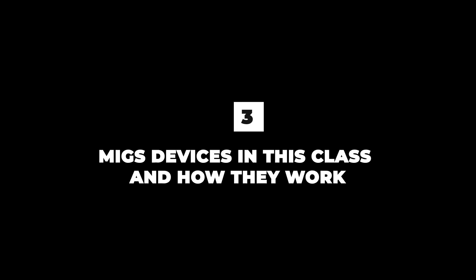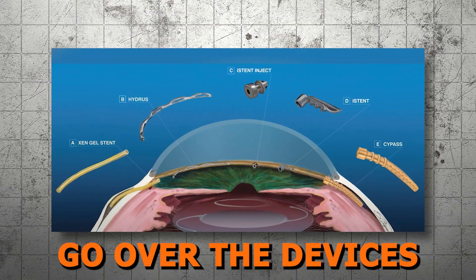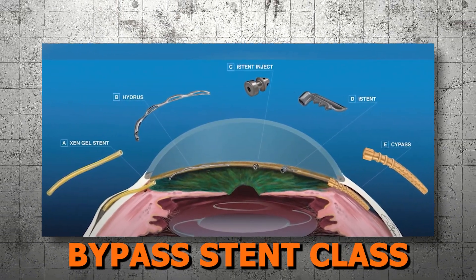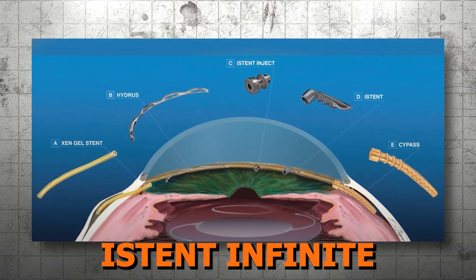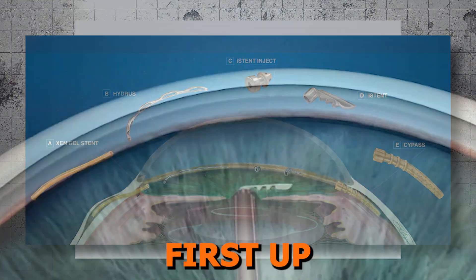Lesson 3: MIGS Devices in This Class and How They Work. Now let's go over the devices that utilize this trabecular bypass stent class: iStent, iStent Inject, iStent Infinite, and Hydrus Microstent.